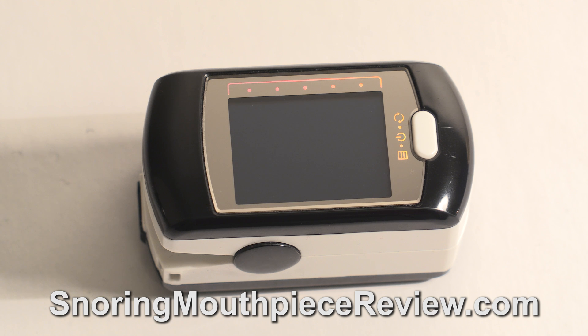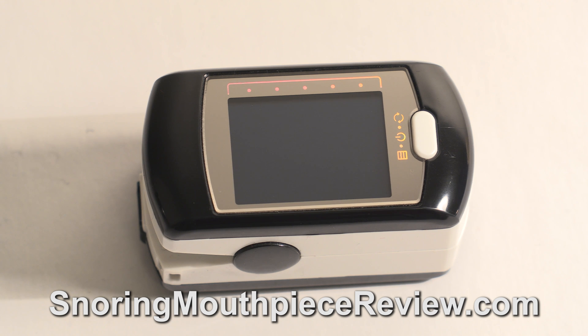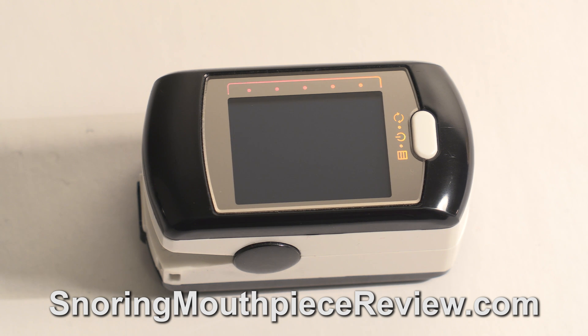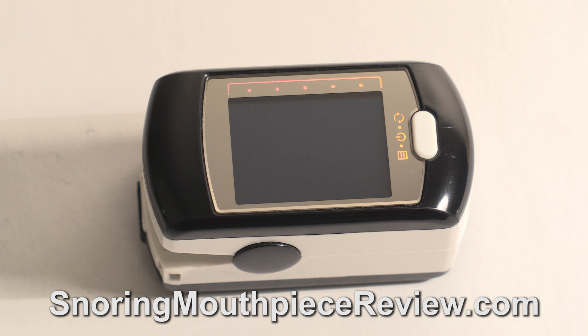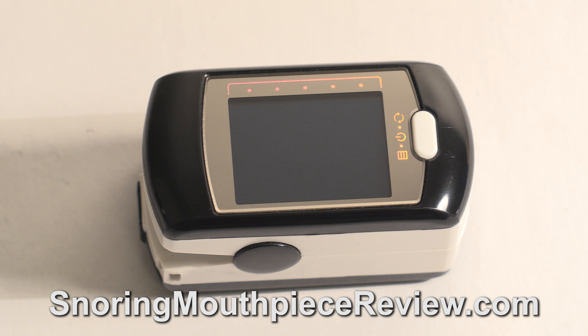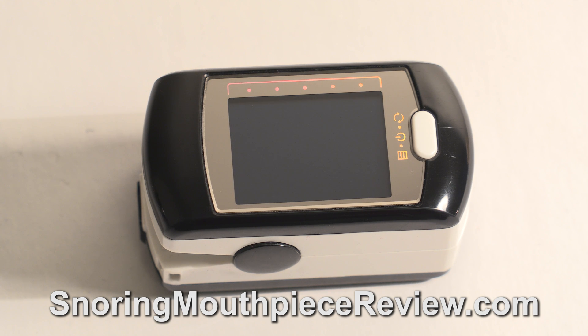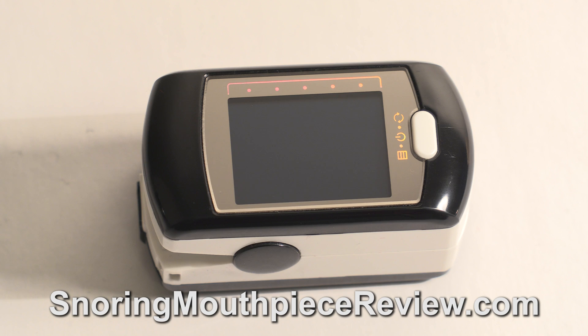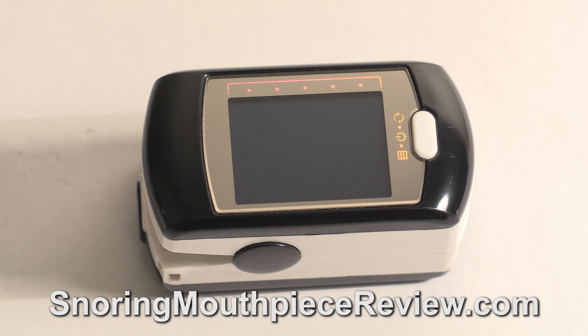This is a demonstration video showing how to check for sleep apnea at home using the CMS50E pulse oximeter. It is important to note that this video is not providing medical advice and is no substitute for a doctor.